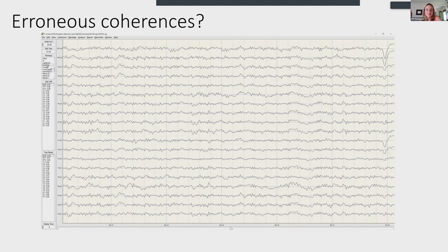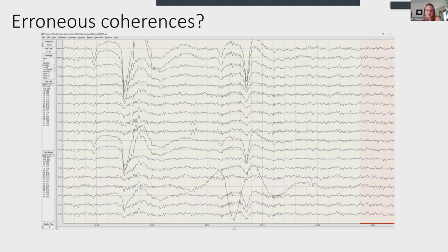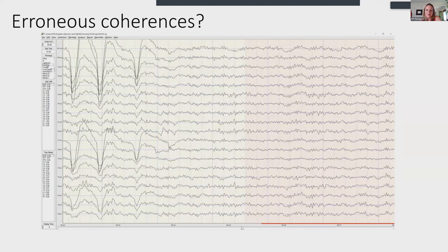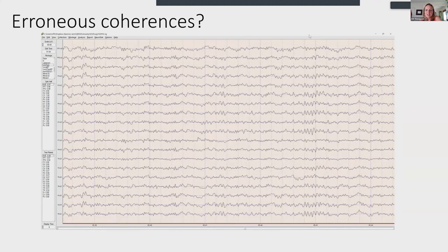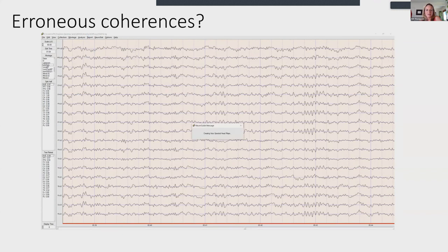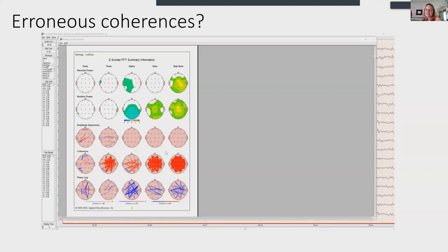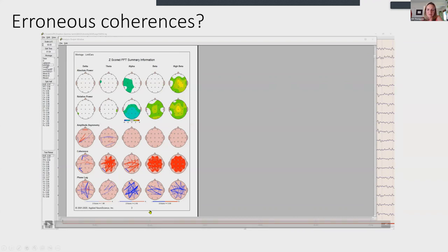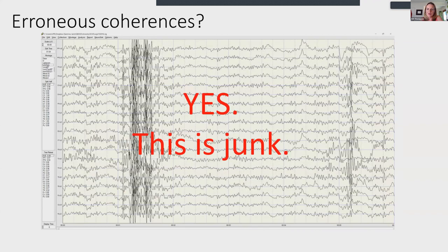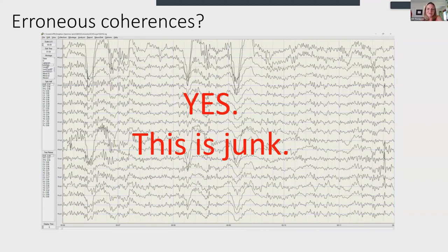Linked ears makes artifacting a bear. If you find yourself in artifacting hell, you're probably looking at the wrong montage — you should be able to artifact with some ease. Looking at this data and checking the map confirms those hyper-coherences are absolutely 100% in lockstep — it's junk data from a bad montage choice.